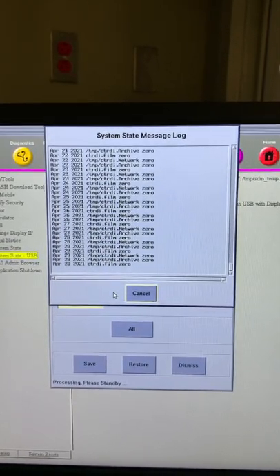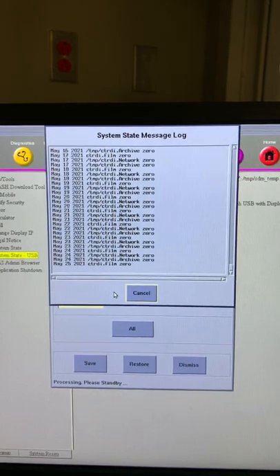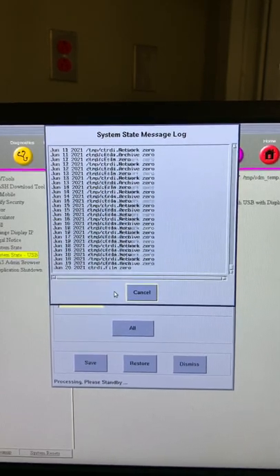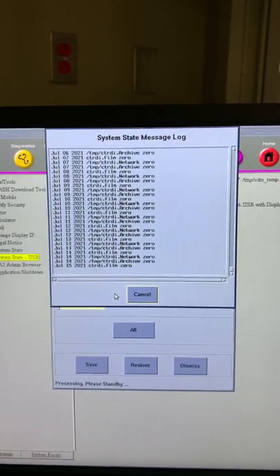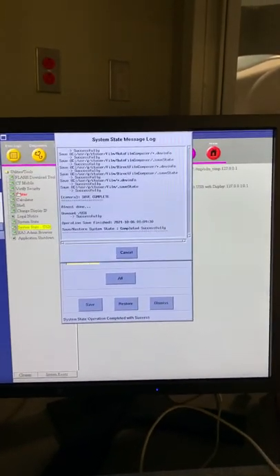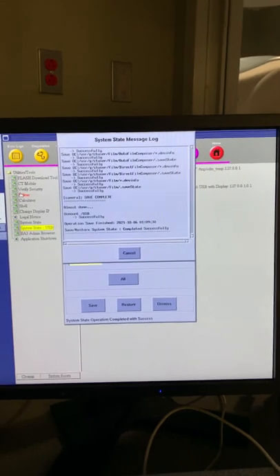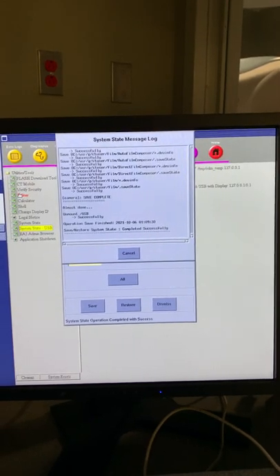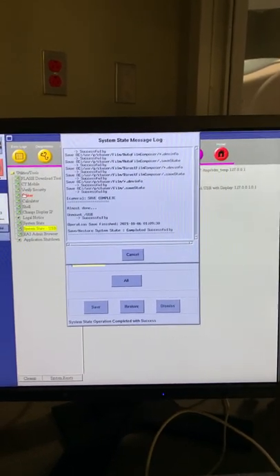The save protocol to USB and save system state to USB procedure averages between 5-10 minutes to complete. The system will update with a message once the procedure has completed.